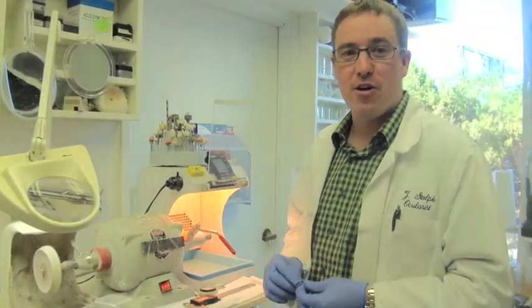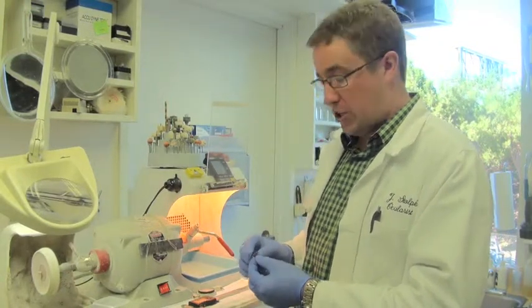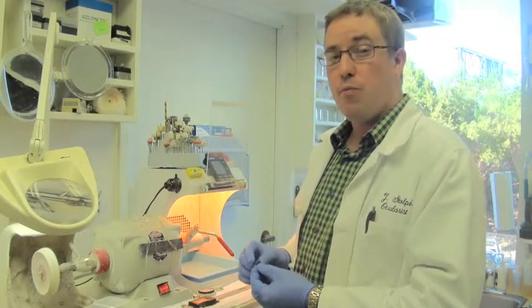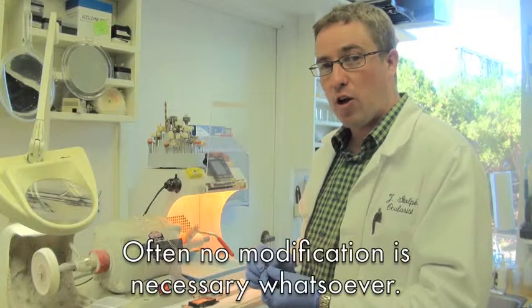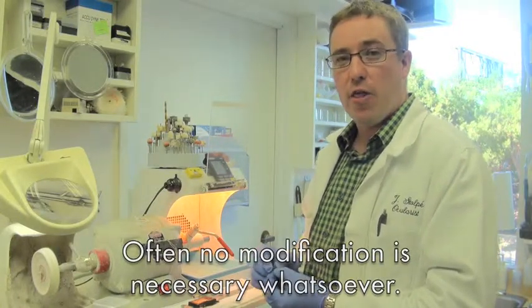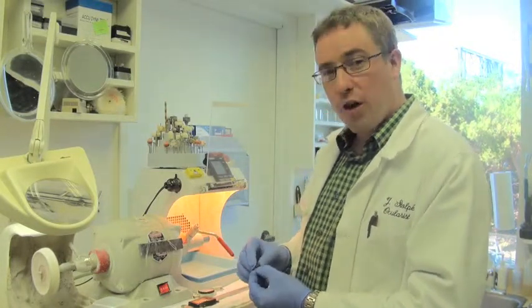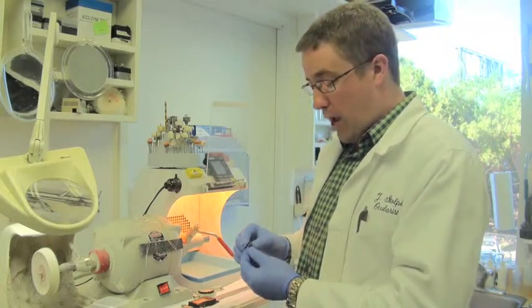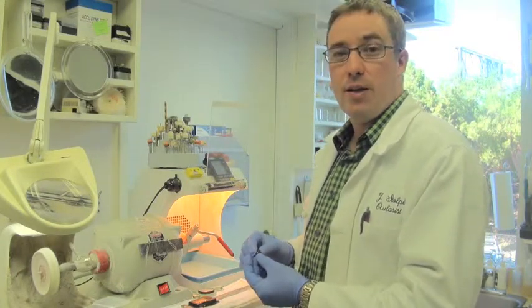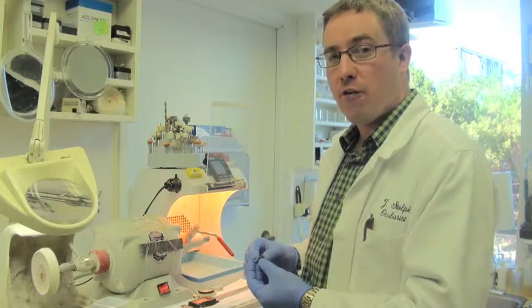Hi, I'm John Stolpe from Irises Unlimited and Advanced Artificial Eyes, and today I'm going to show you more information about how we prepare an iris image for use in a prosthesis. Generally, no work is really necessary and they're ready to go right into the prosthesis. However, in certain circumstances, such as a very thin prosthesis or a prosthesis that needs a soft limbal blend or a smaller diameter, we're able to adjust the iris image so that it can be best used into the prosthesis. Today I'm going to show you how we do this here in our office efficiently and effectively.